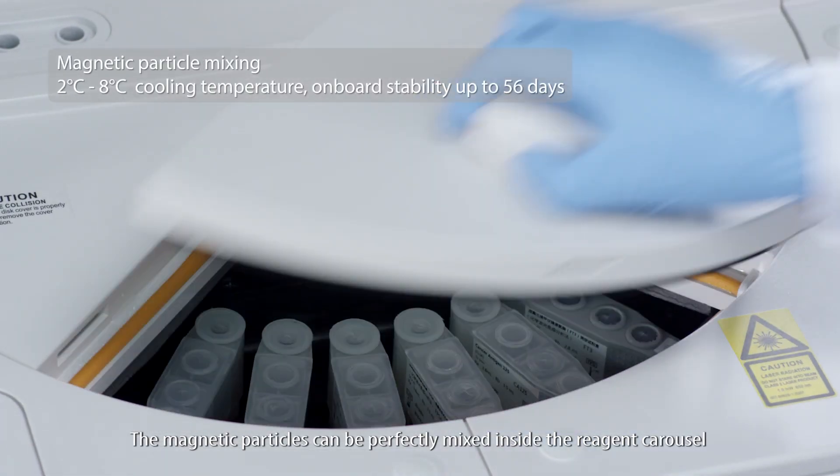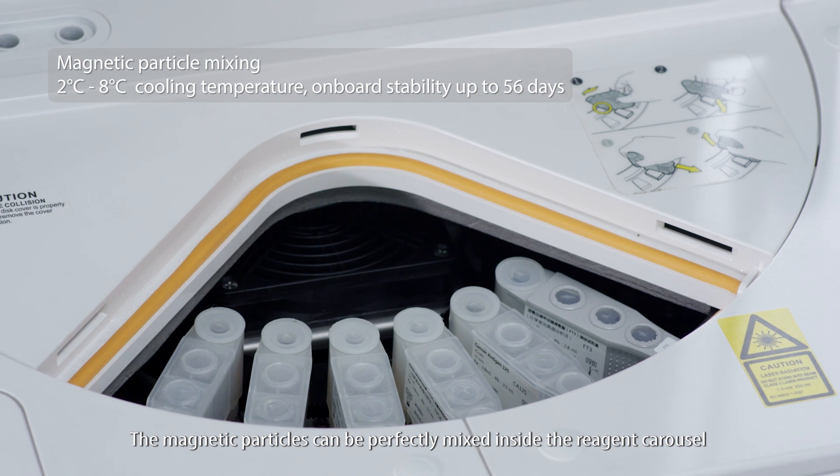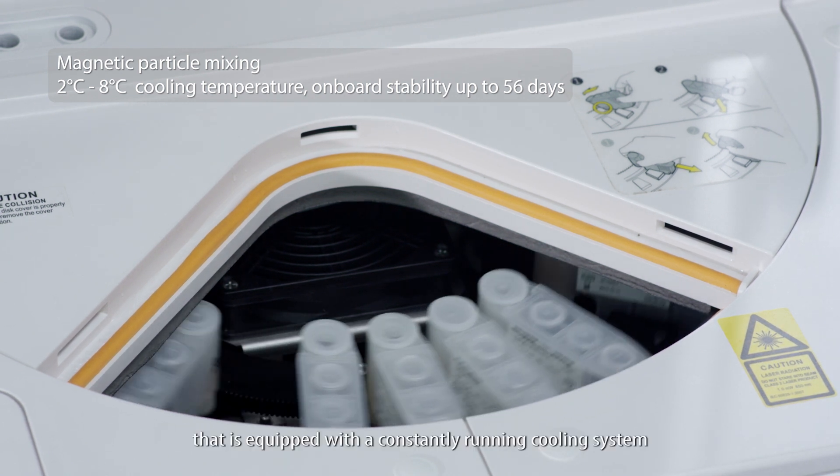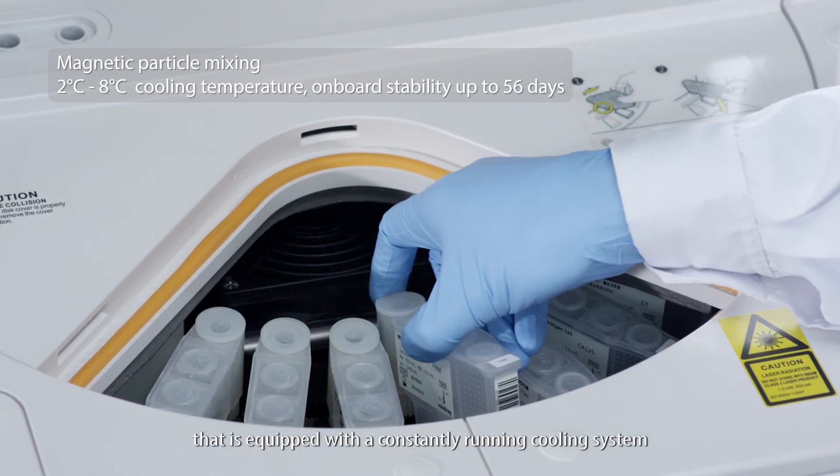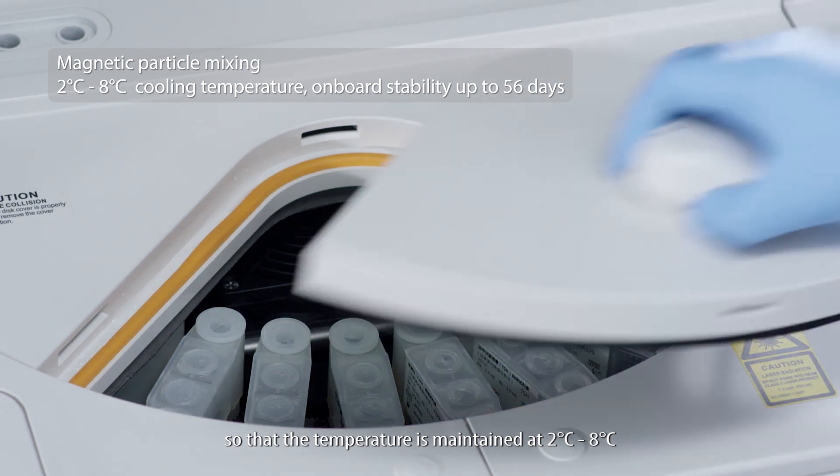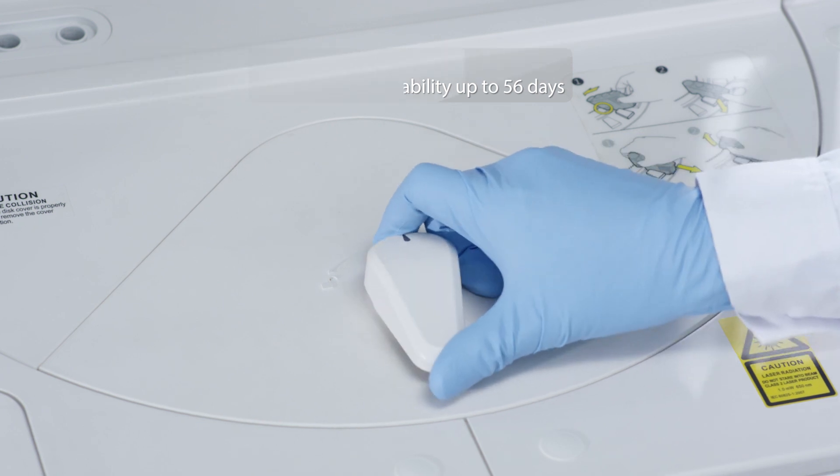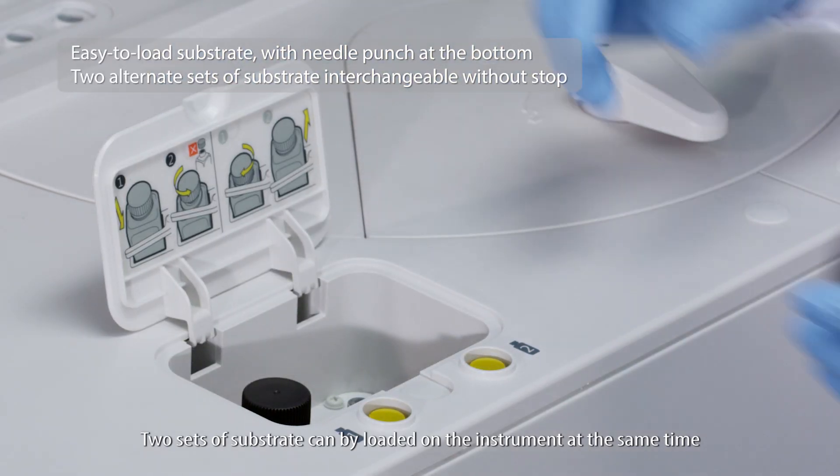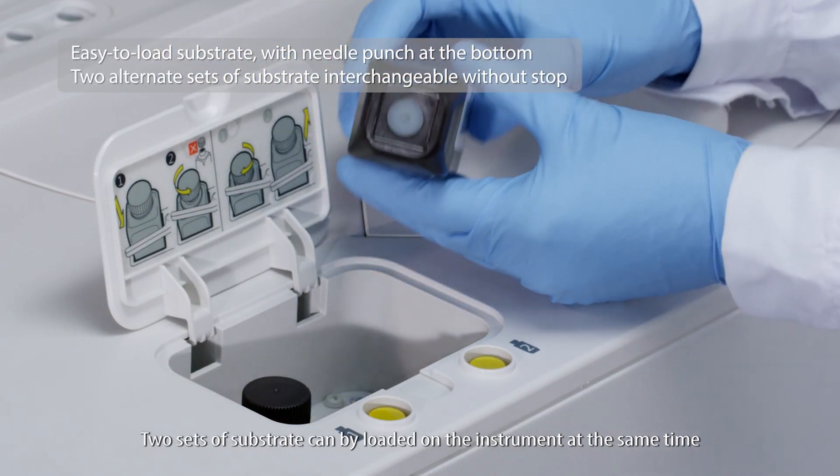The magnetic particles can be perfectly mixed inside the reagent carousel that is equipped with a constantly running cooling system, so that the temperature is maintained at 2 degrees centigrade to 8 degrees centigrade. Two sets of substrate can be loaded on the instrument at the same time.